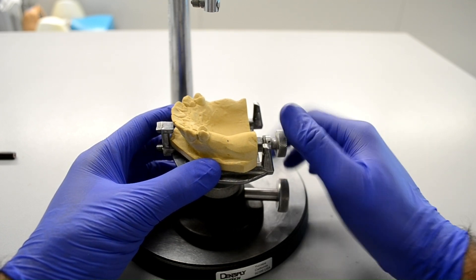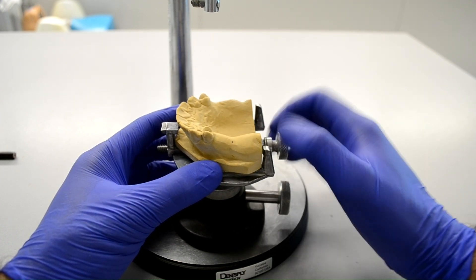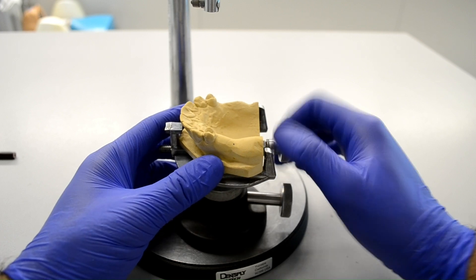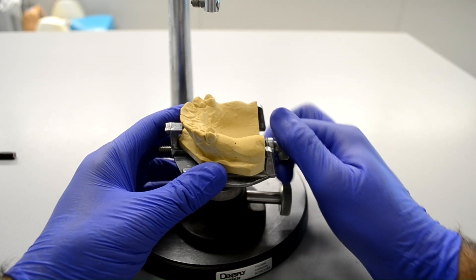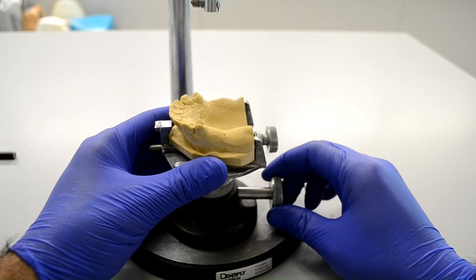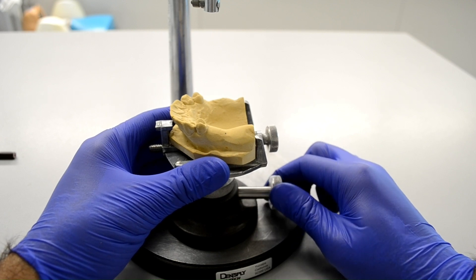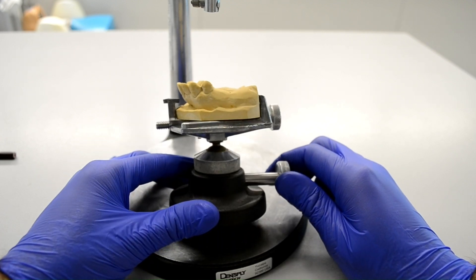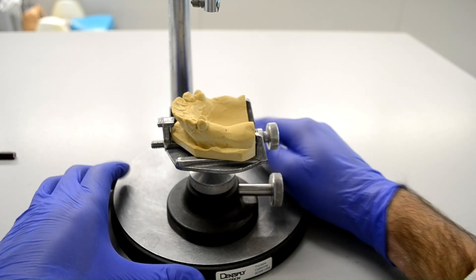We will start by securing the cast onto the table. We want to make sure that the screw is tight enough so the cast is not moving, but not too tight as to break the cast. We also want to make sure that the occlusal plane of the cast is fairly level with the horizon.